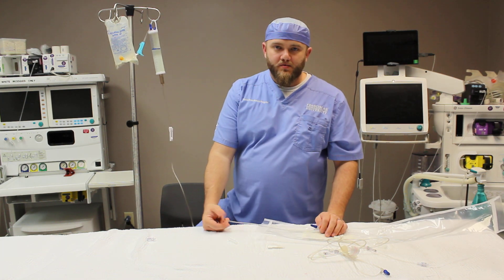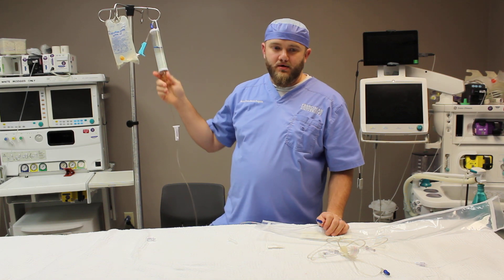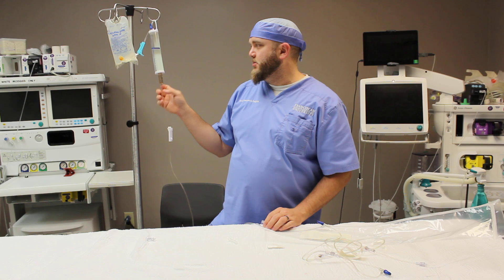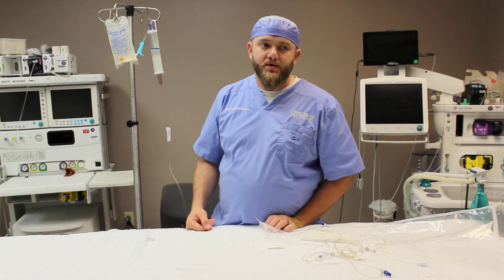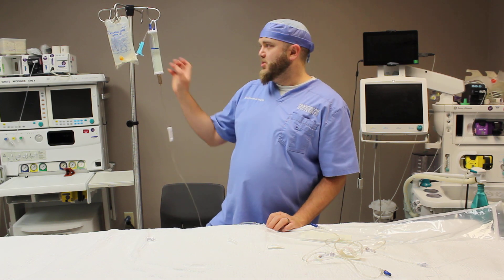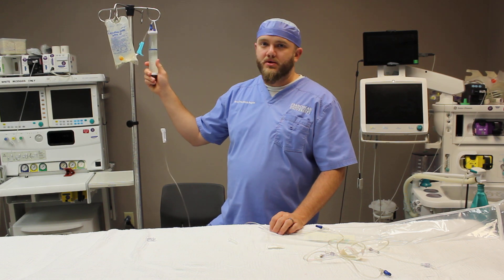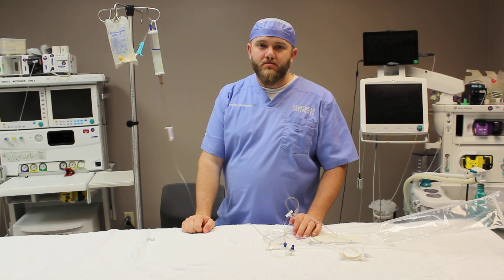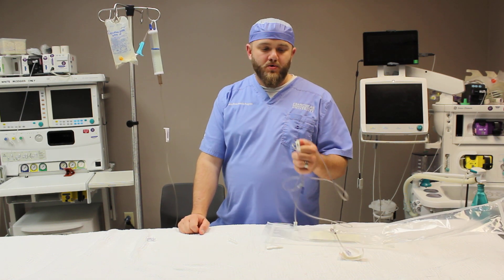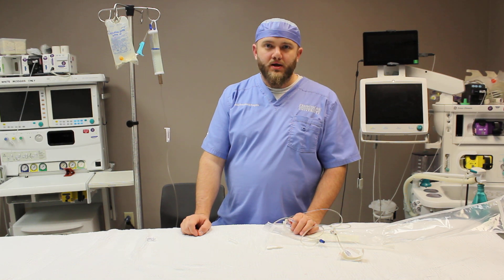Things you want to be careful of: no air in the system. You also don't want to puncture any of the mechanisms in this system to vent air, with the exception of the needle ports — don't puncture into the buret chamber, the drip chamber, or any soft areas, as that runs the risk of entraining air into the system. If you're using this with a pressure system to deliver blood products, do not count on this system to prevent air, because it will get air into it. You should swab all needle injector ports thoroughly with an alcohol swab before injecting any medicines. If you're using those needle ports, use small gauge needles — something like a 25 gauge up to about a 20 gauge — to prevent any air from getting in. Other than that, I think that's about it, and I thank you all for listening.